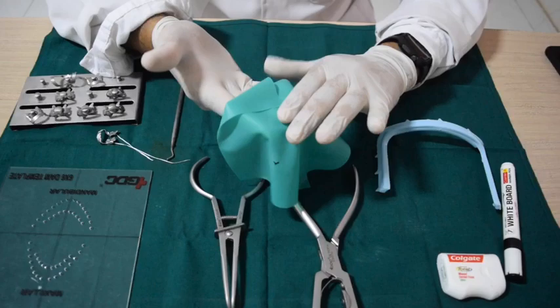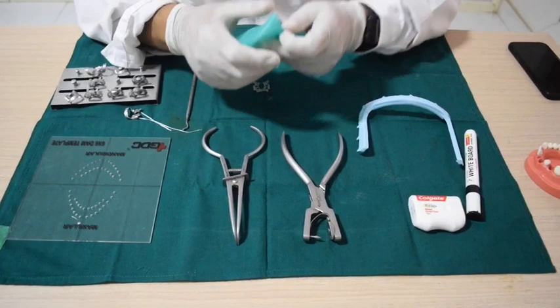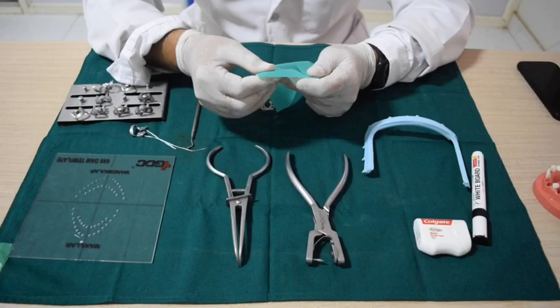When we are using it on the patient, we need to see to it that the dull surface is facing the operator. There are different thicknesses of rubber dam sheet — we have medium, heavy, and special heavy. This one shown here is a medium sheet.